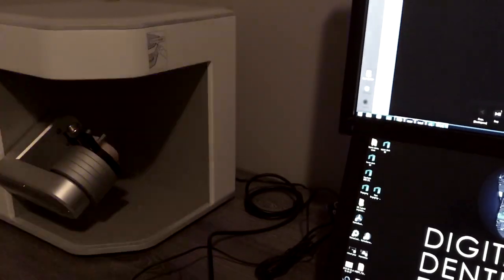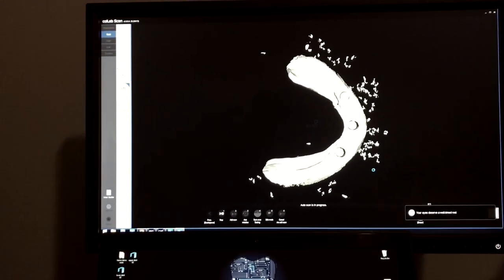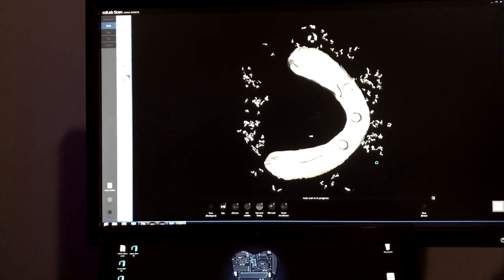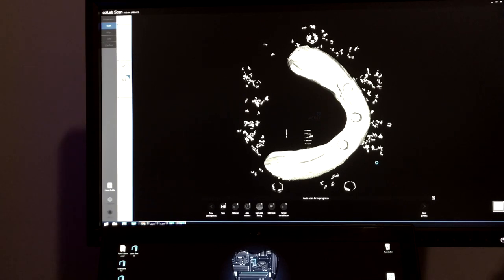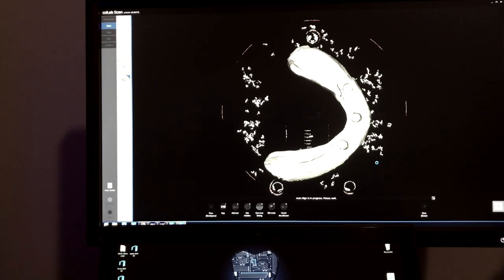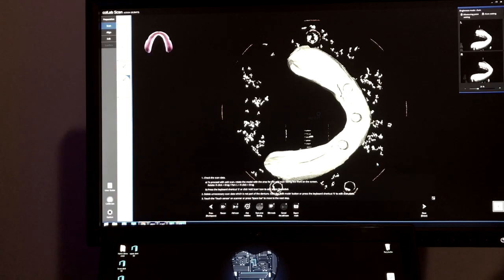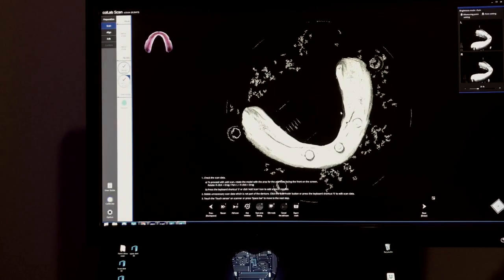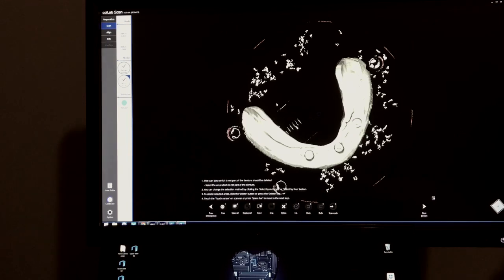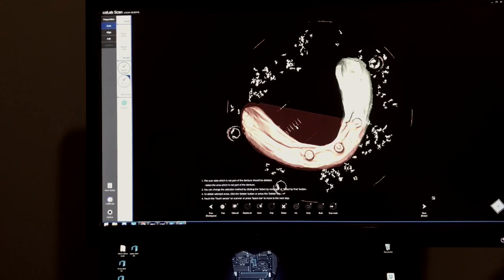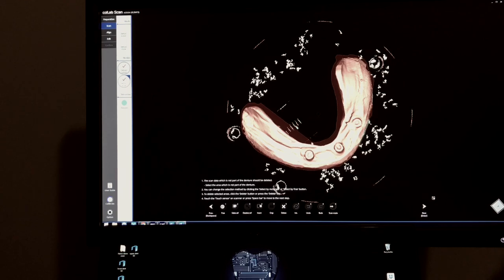You can see on the screen how the scan is generated. This is going to rotate in 360 degrees, scanning the whole thing. Takes a couple of seconds. Again, I dare anybody with an intraoral scanner to scan this fast - it's impossible. Again, I want to edit this and I'm going to select the denture real quick.